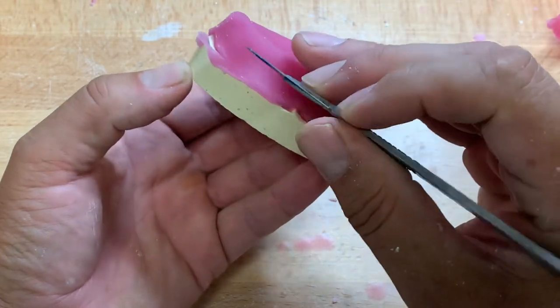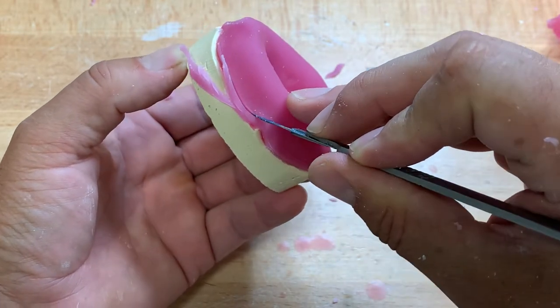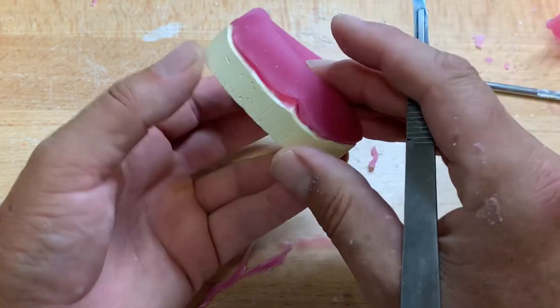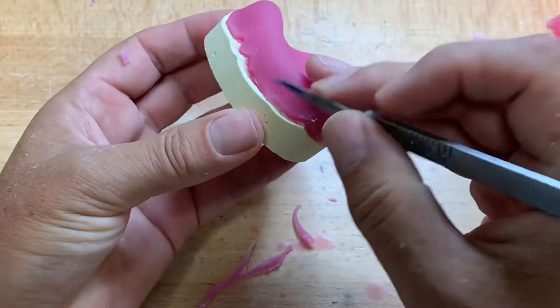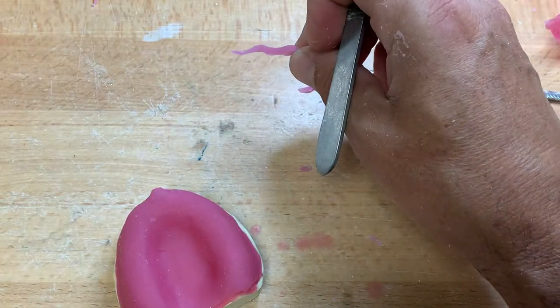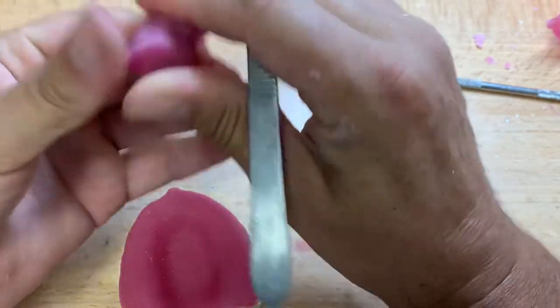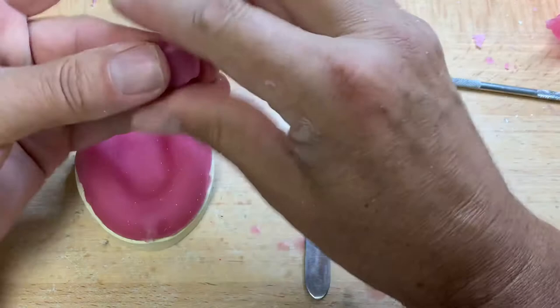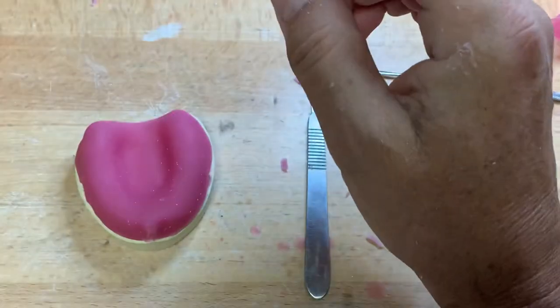I've taken the frena out here. The less trimming at this stage, the less risk of cutting too much — because you can't add it back after it's cured. I've taken the nose of the handle off and tried to smooth these two sections together. You do have lots of time unless you're working under intense lights where this is going to set off quickly, or the material has aged. I've gone around both frena — I aired on the longer side of the tray. The land area of your model helps guide you in the length.